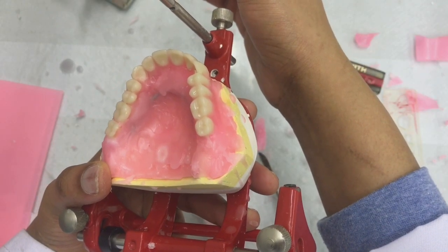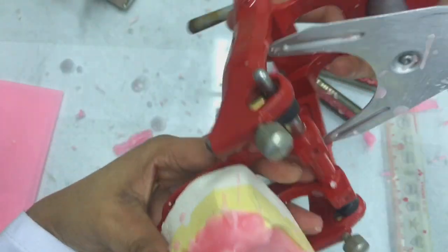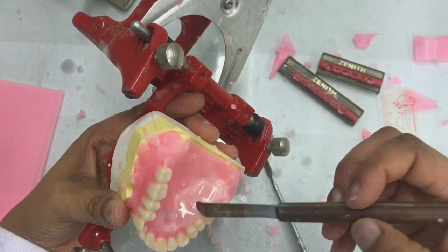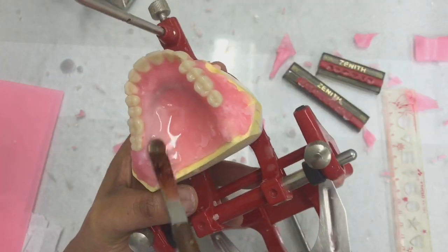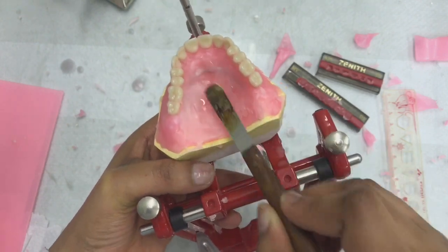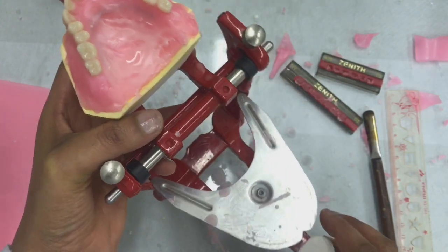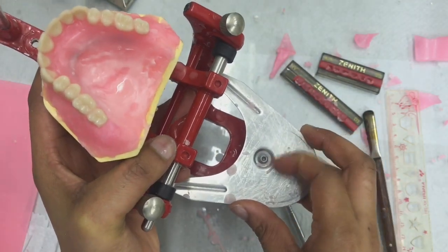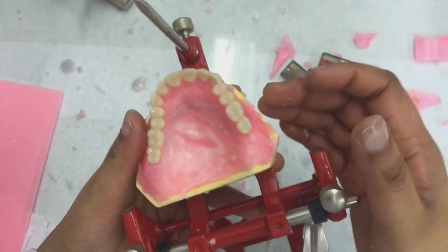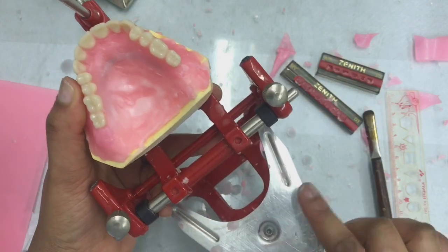So now I'm going to try and even out the wax on my base plate. I will come back to my waxwork, because before I first do it, I will have to double check that all my teeth are still sitting correctly on the occlusal plane table. As I have mentioned before, the wax shrinks, and when the wax shrinks, it will contract with the teeth. So you just need to keep on double checking that your teeth are still sitting correctly on the occlusal plane table.